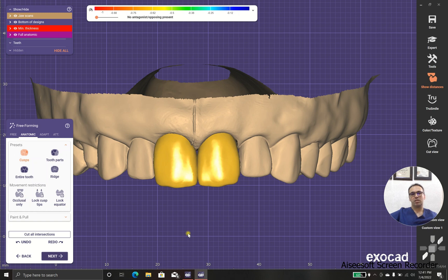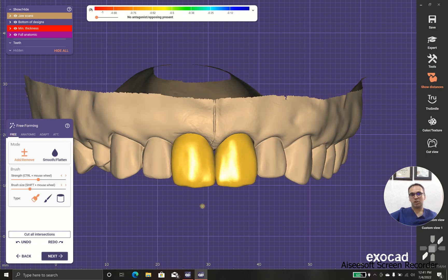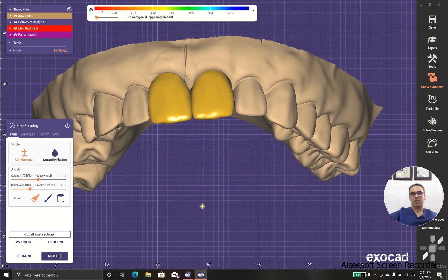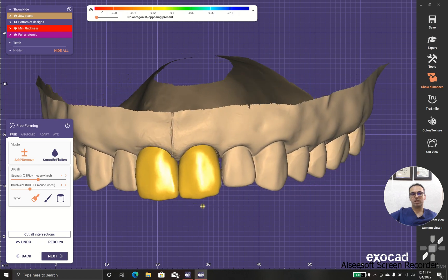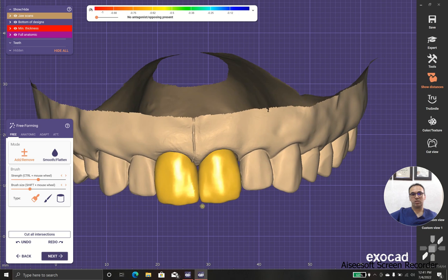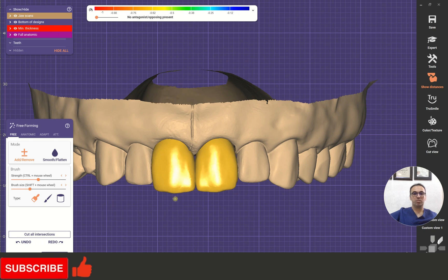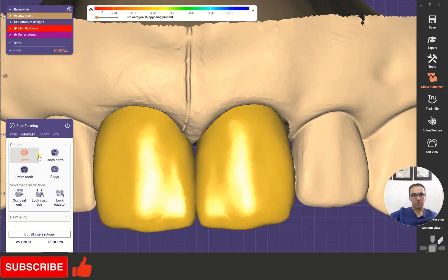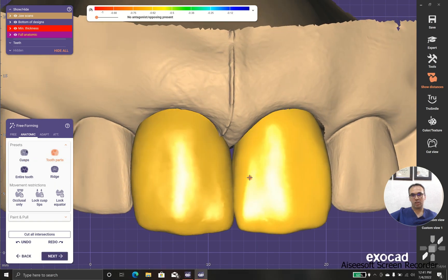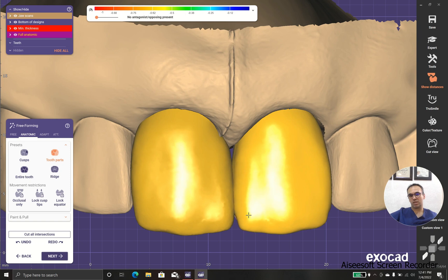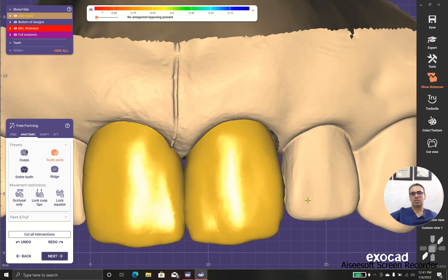I want to tell you some tips on how to design laminates like a pro. The tip is: check the line angles. The line angles make magic, and these magics come from light. How do you use light — are lights in your hands, or are lights going to ruin the beauty of your work? We could change the line angle positions to make the tooth look like it has more width, or it looks fat. Or we could do the opposite and let the tooth look thinner.